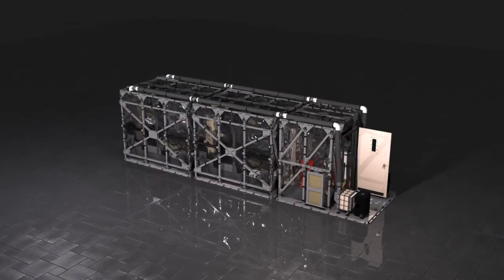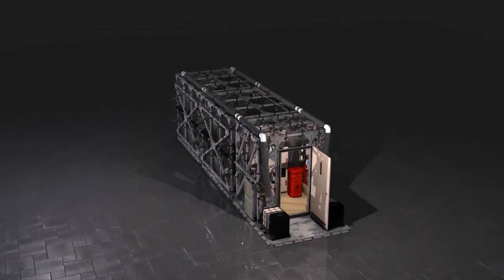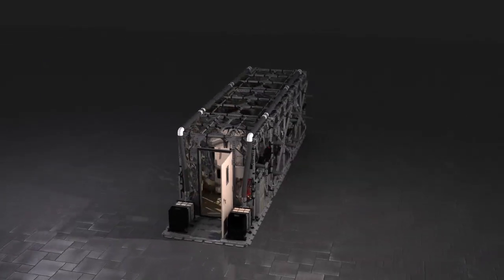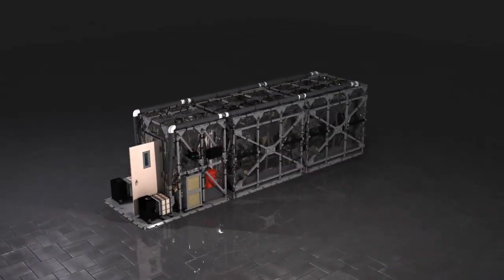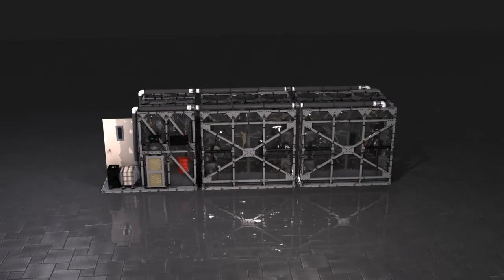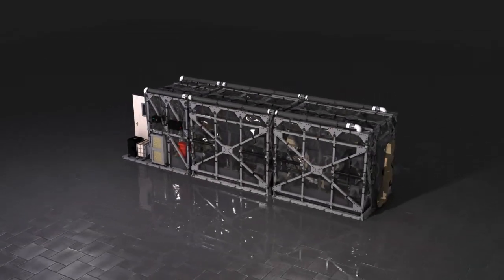The TIS, or Transport Isolation System, is a system designed to maintain infection control during aeromedical evacuation of multiple asymptomatic infected or symptomatic patients.